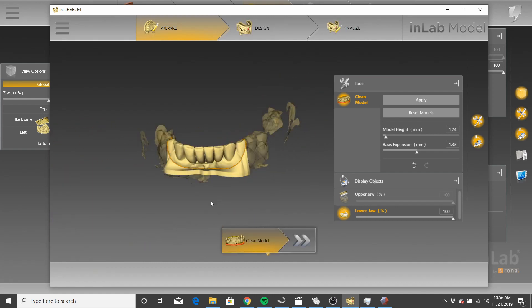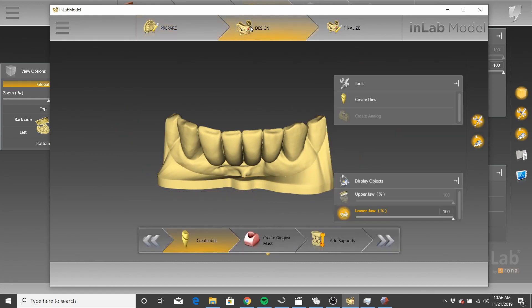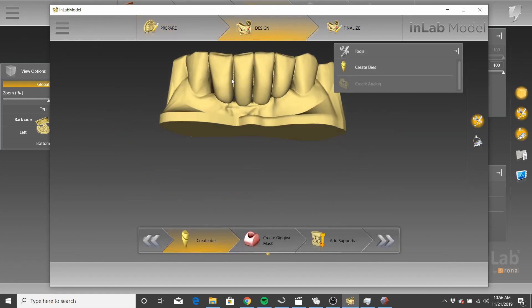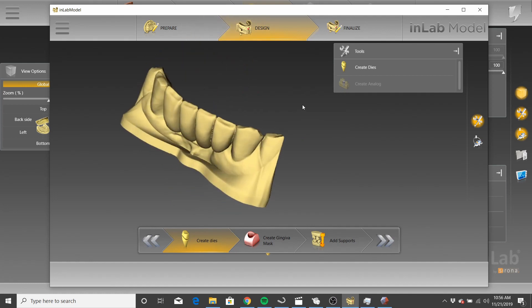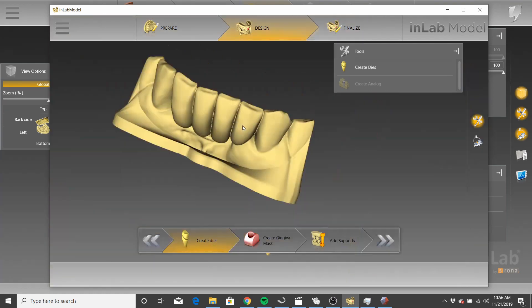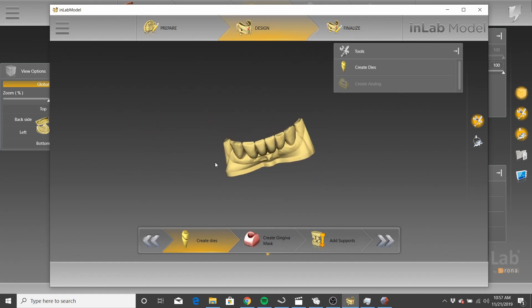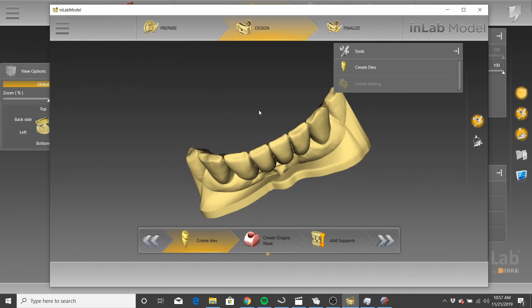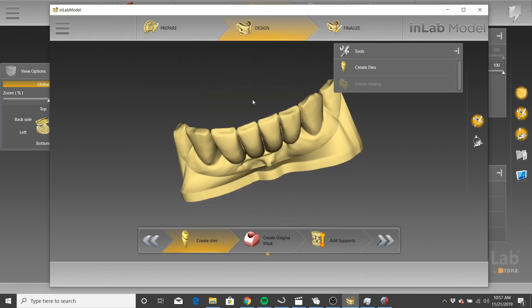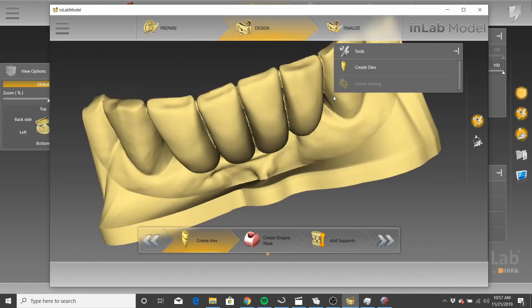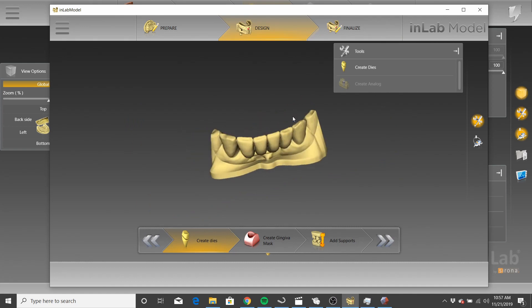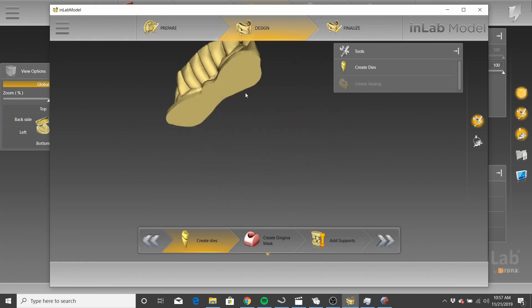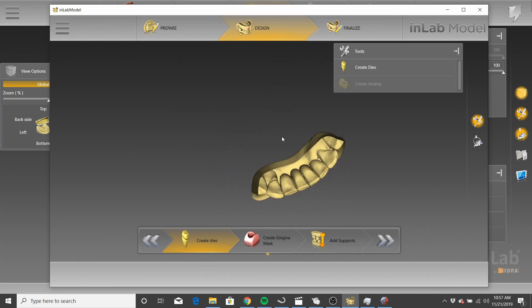And now when we have our model, those are incorporated in the design. That is how you create a diagnostic wax-up with... I wouldn't even know how to say this, but you can create a diagnostic wax-up by indicating the wax-up as a bridge, you just do have to use a little bit of a workaround to get it to create the model. Hope that this was helpful, ciao.